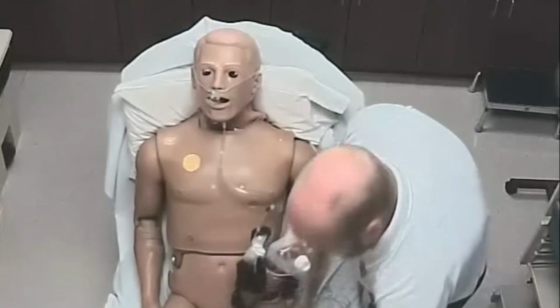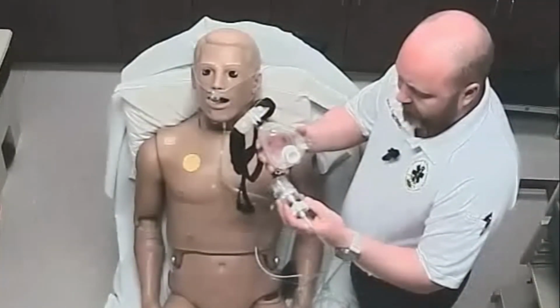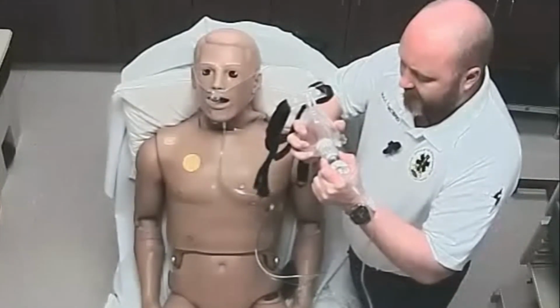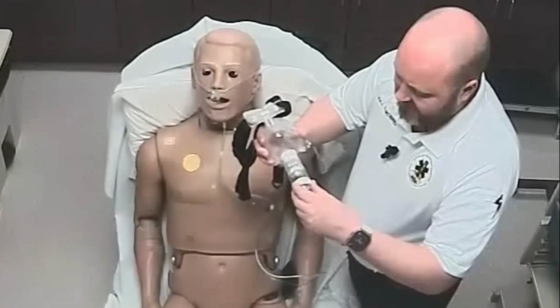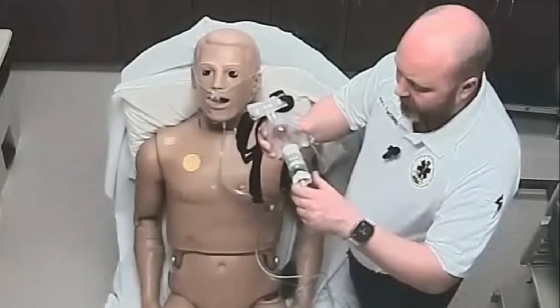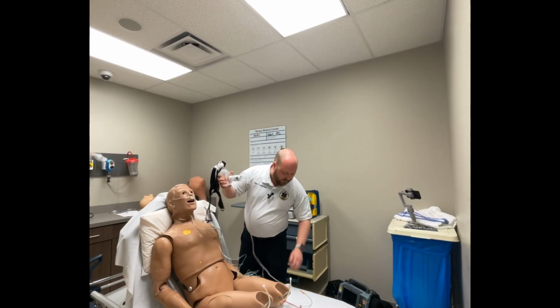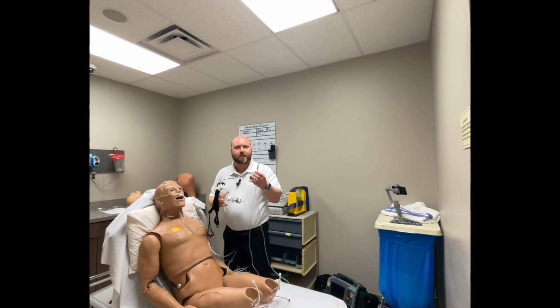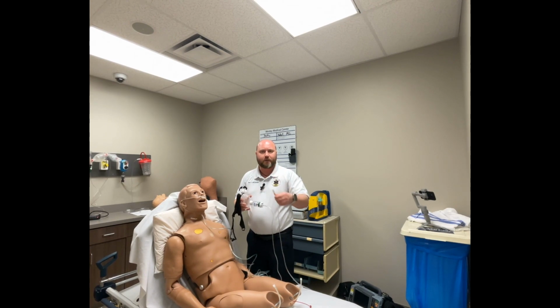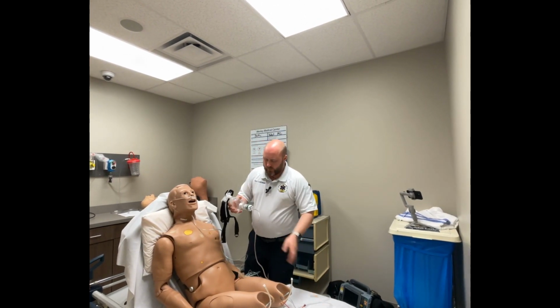We can go ahead and start assembling our mask together. So this blue port is going to go down, so we're going to assemble that into the down position. Make sure this is down to 5. You can go all the way up to 10 per standing order, but we're going to maintain it at 5. And in case you forget, this goes on 10 liters per minute of oxygen. There's a little sticker on the end of the label that actually will tell you in case you forget about it.